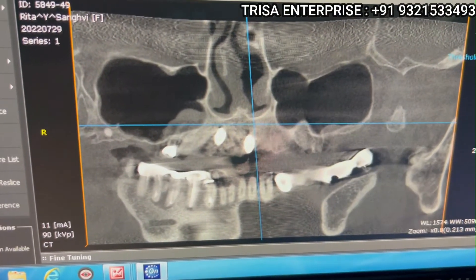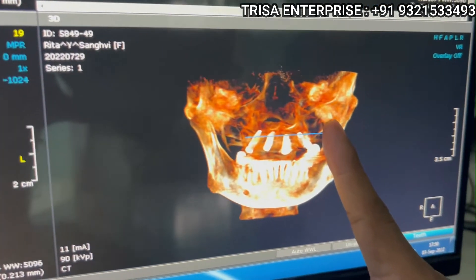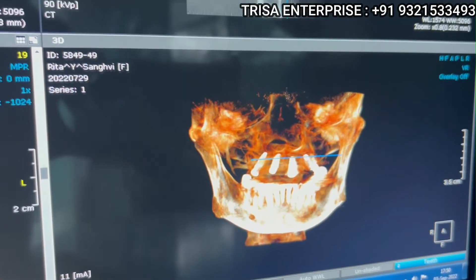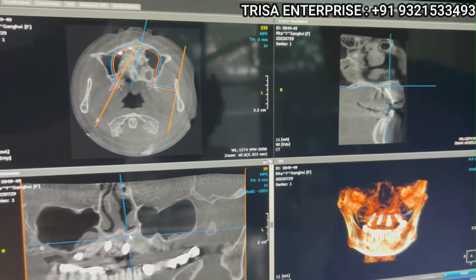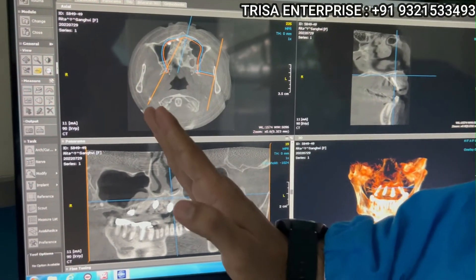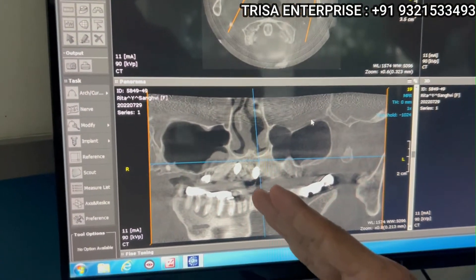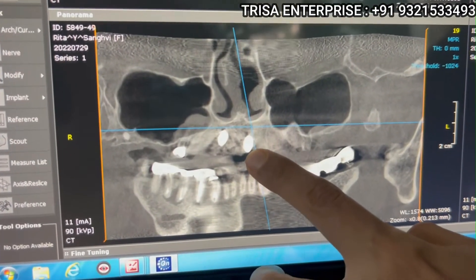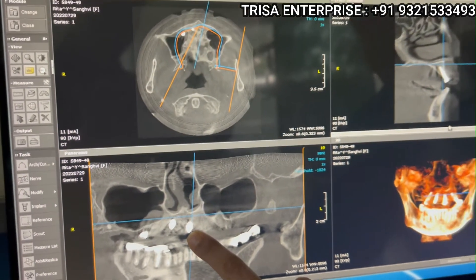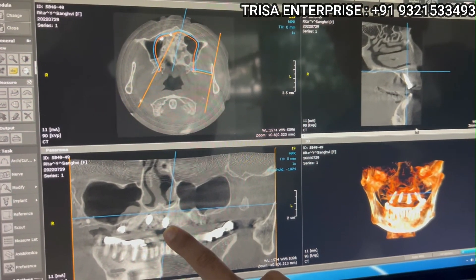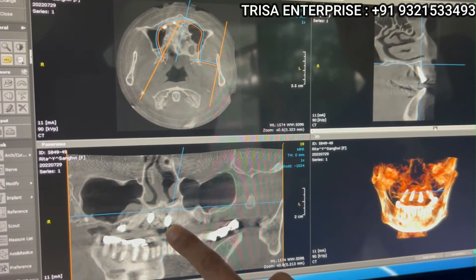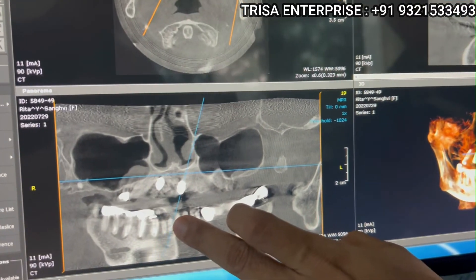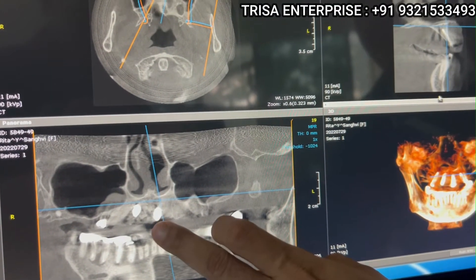Can you see this line? If you look at this, the implant is not placed straight in the mouth — it is tilted. So the first thing we need to do whenever evaluating a CBCT is take this plane and modify the line. Can you see how I am changing the tilt? Now I have matched the tilt to the actual position of this implant.